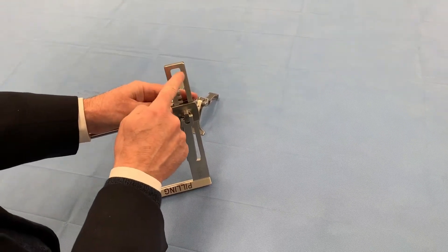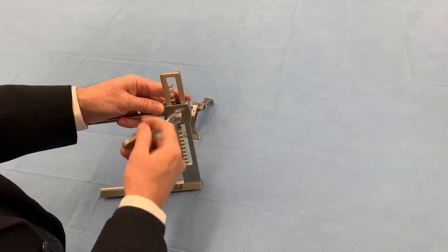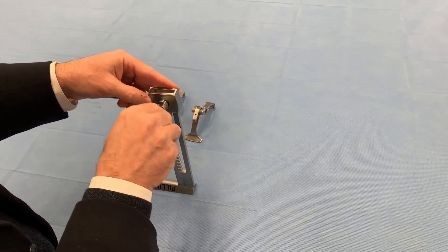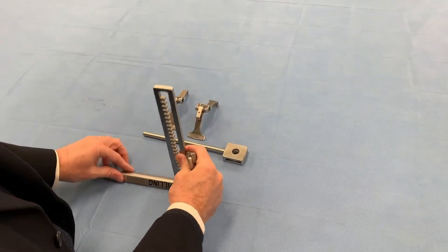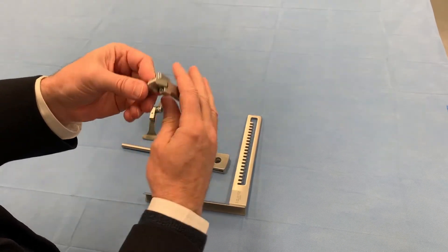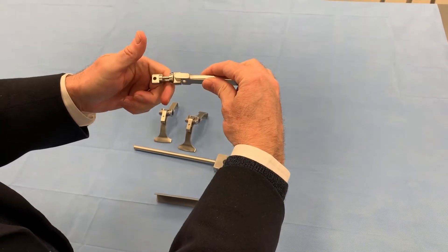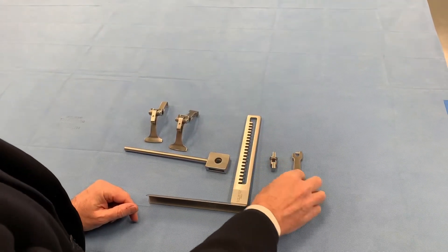Here's the handle. We're going to crank it up to this space right here, past the last tooth on the rack. That will allow us to pull the pinion out — you just pull it like this. Once you get up here flush, the pinion comes right out and the bar lifts off. You can also take the handle off the pinion. There's a skinny end right here across the top and a thick end. If you have it to the sides, it won't come off, but if you have it right in line, then it comes right out. You have the two pieces — the pinion and the crank handle.